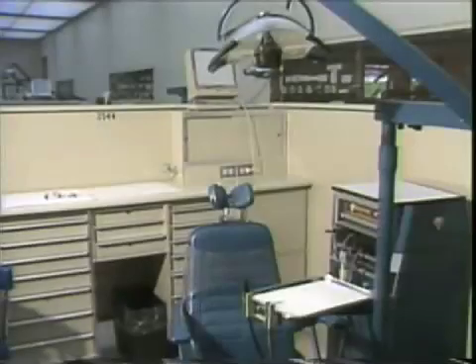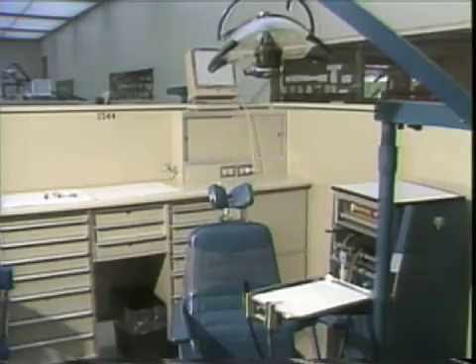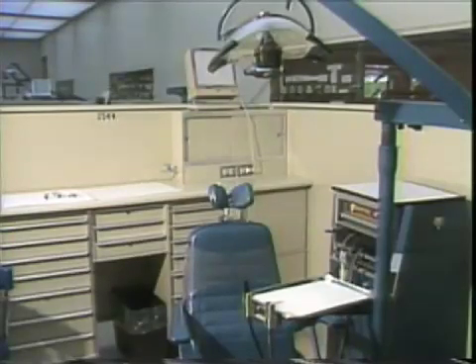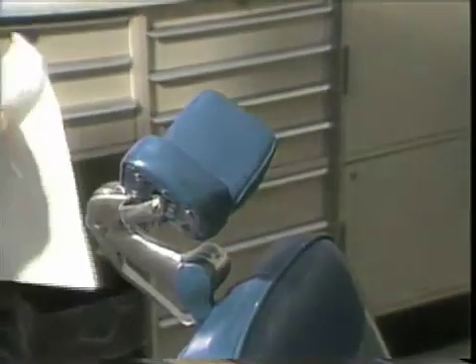Then place the paper products out: the tray covers, the unit top cover, the countertop covers, and the headrest cover.